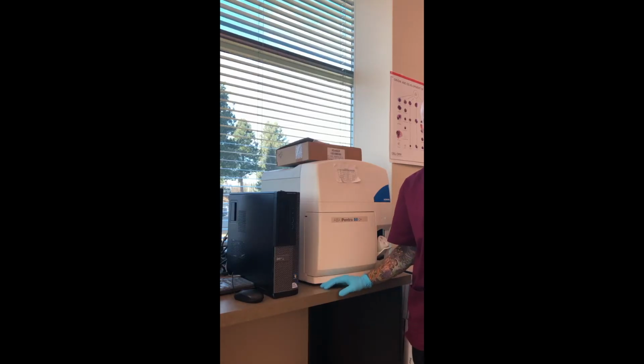Now let's say our startup didn't pass, and according to the user manual, the first thing we want to do is check the reagents to see if they are expired. Now this is a student lab, and it's a reality of ours that our reagents get donated to us, and we don't normally get reagents donated that are not expired.